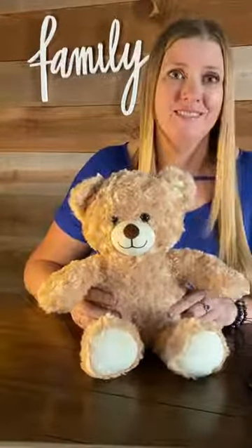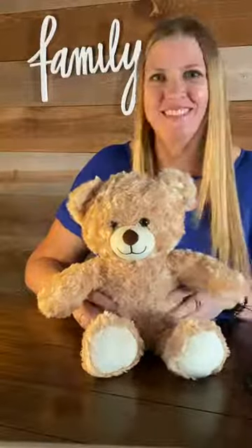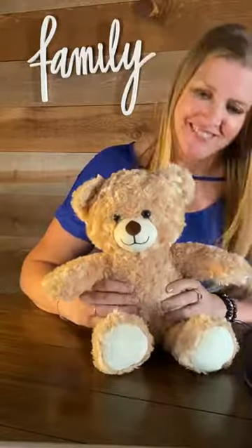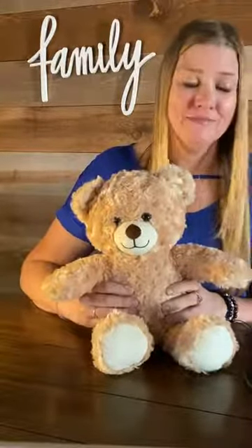Let's see what she says. Wow, I am feeling fuzzy today. How about you? Press my yes paw if you took your medicine — maybe that will wake me up. Or press my no paw if you did not take your medicine. We took our medicine, so we're going to press the yes paw. Hey, you are smarter than the average bear today. Later Gator.